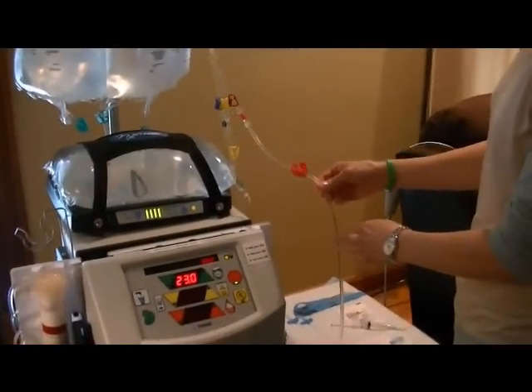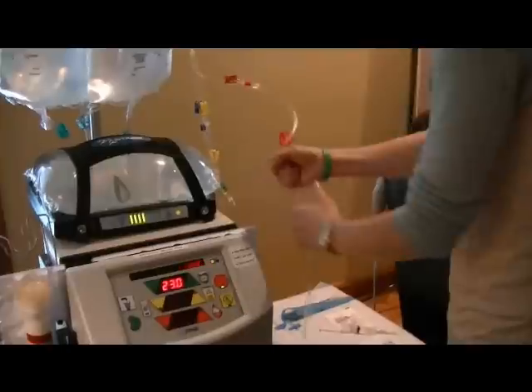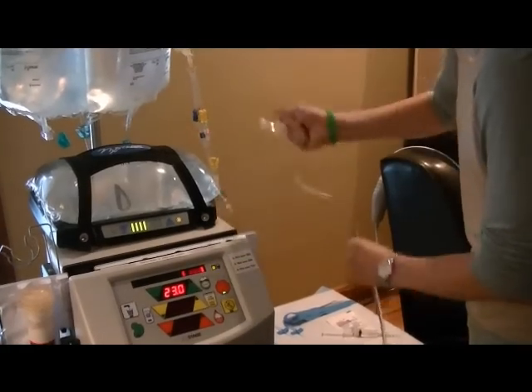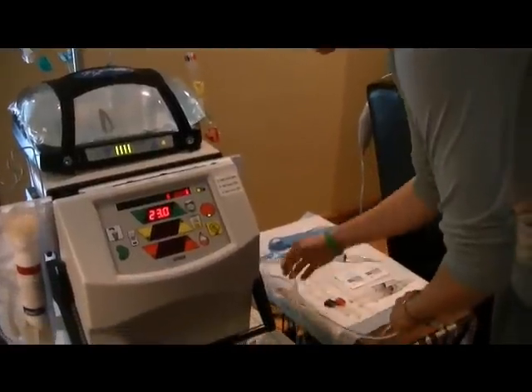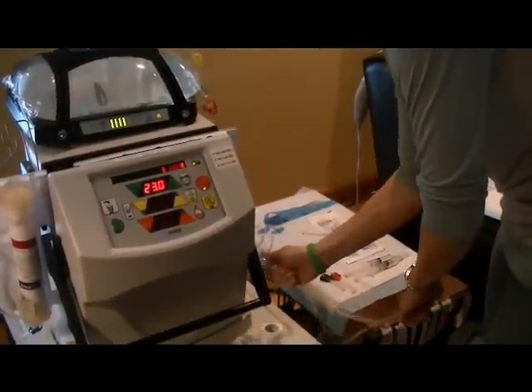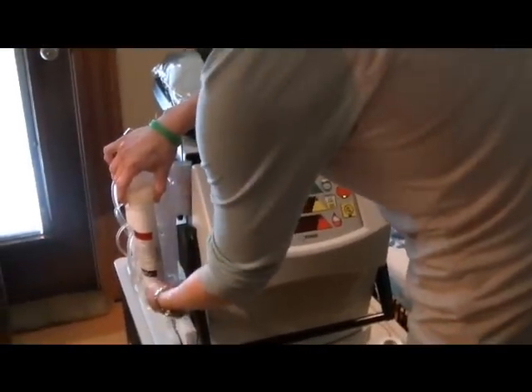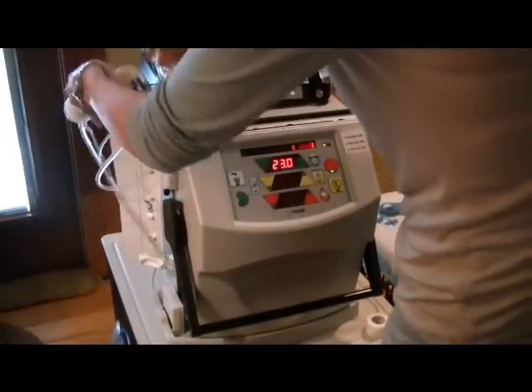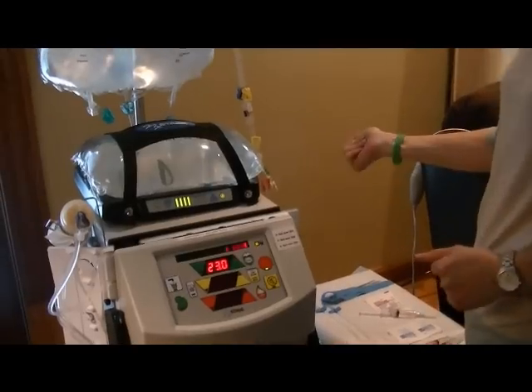The next step we do is called snap and tap, and you have to do it to get all of the air out of the lines. You go down each line — the red, then the cartridge, then the blue — all the way down to get all the air out. You tap this little guy here to get the air out, then you come over to the cartridge, the filter, and you hit it to get all the air out. You go through and do all the lines in the cartridge twice to make sure you've got all the air out.